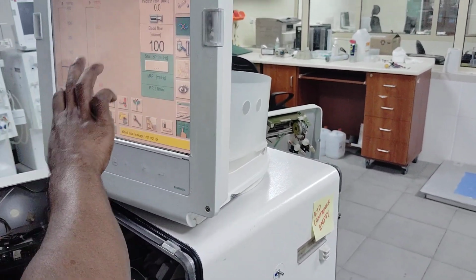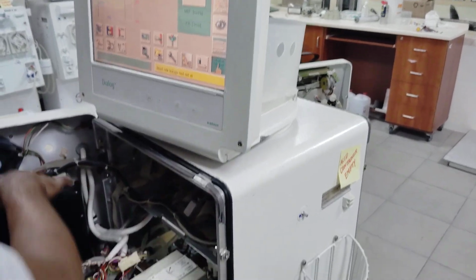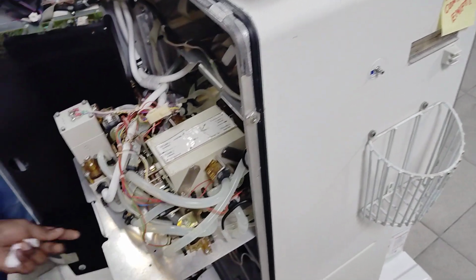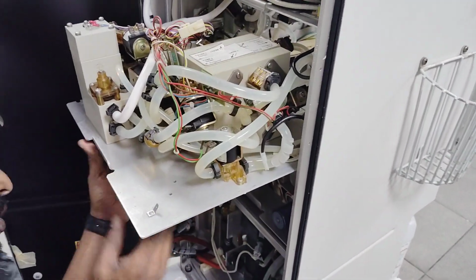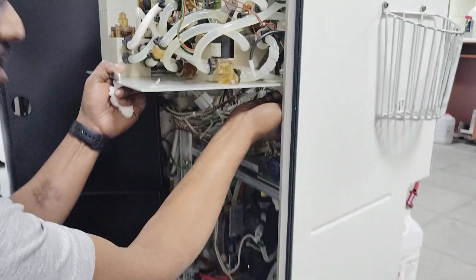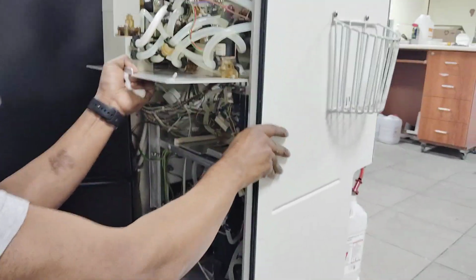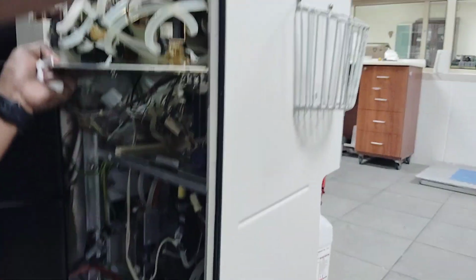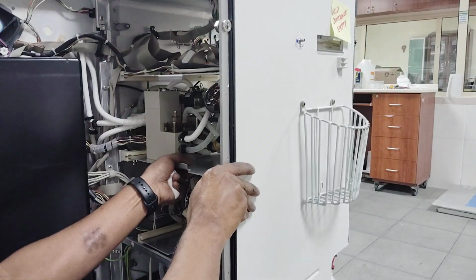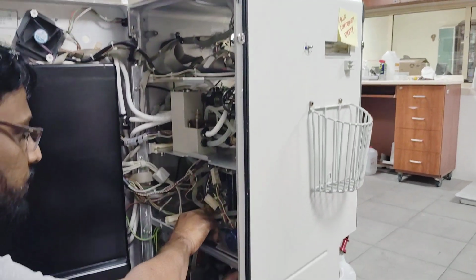That is what the preparation is trying to do here, and it is sent to the dialyzer, and it will go to the patient's body. It will connect with the blood actually. With the blood, it will go to the patient. So this one, third stage.